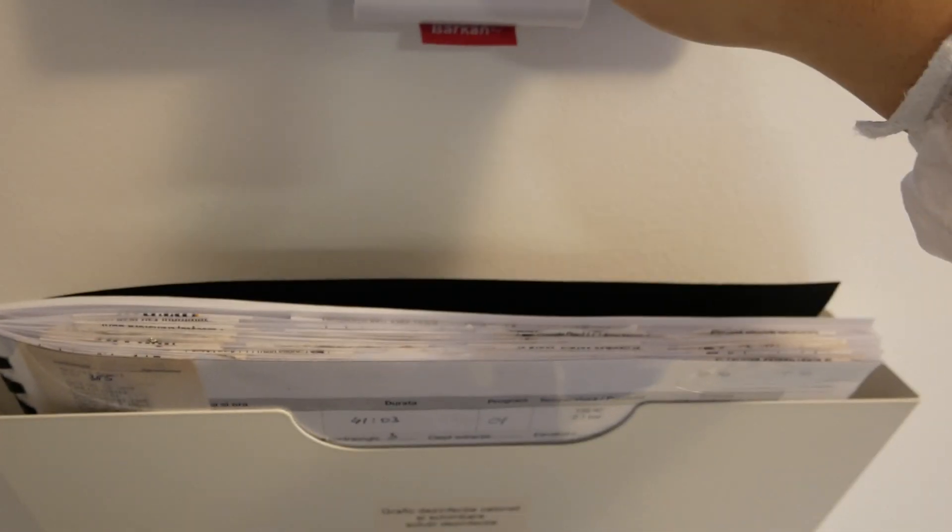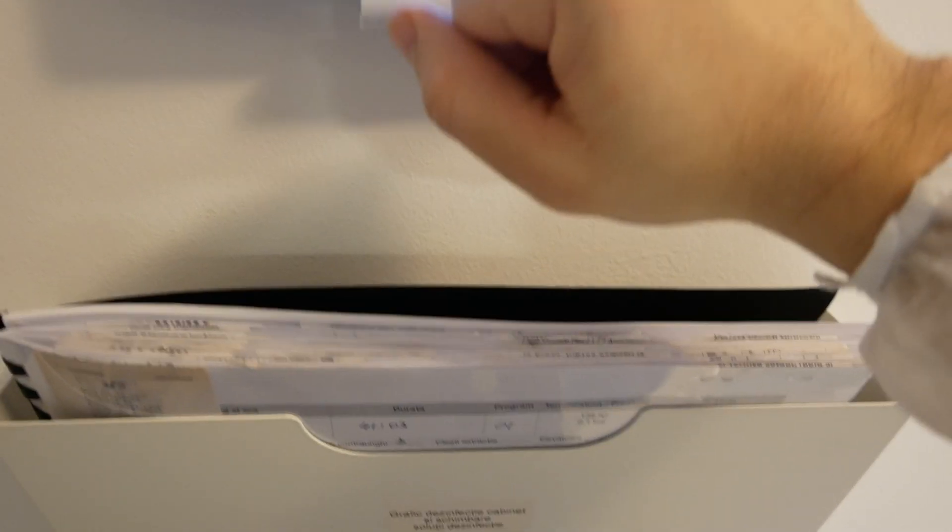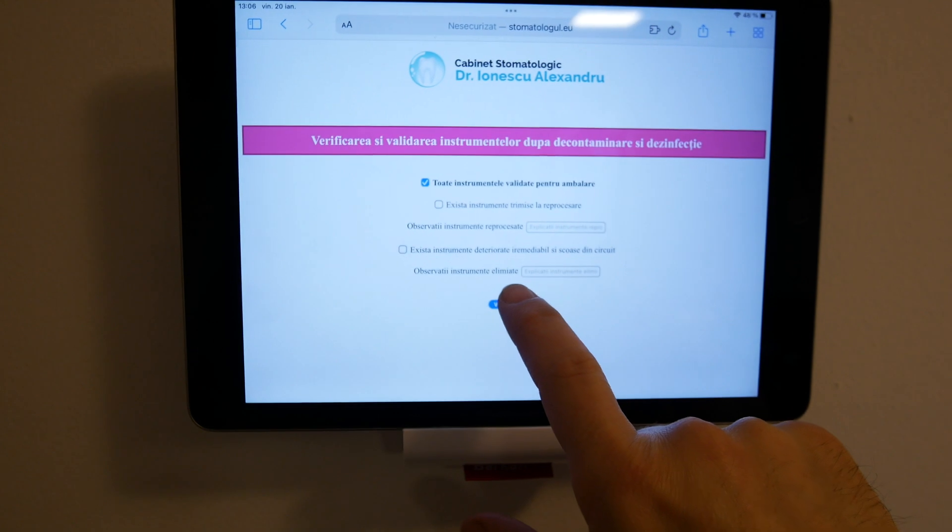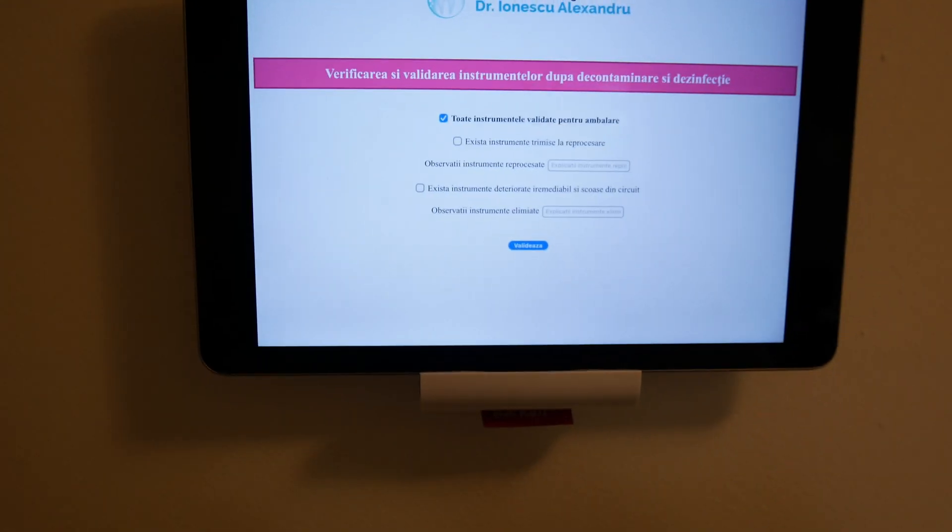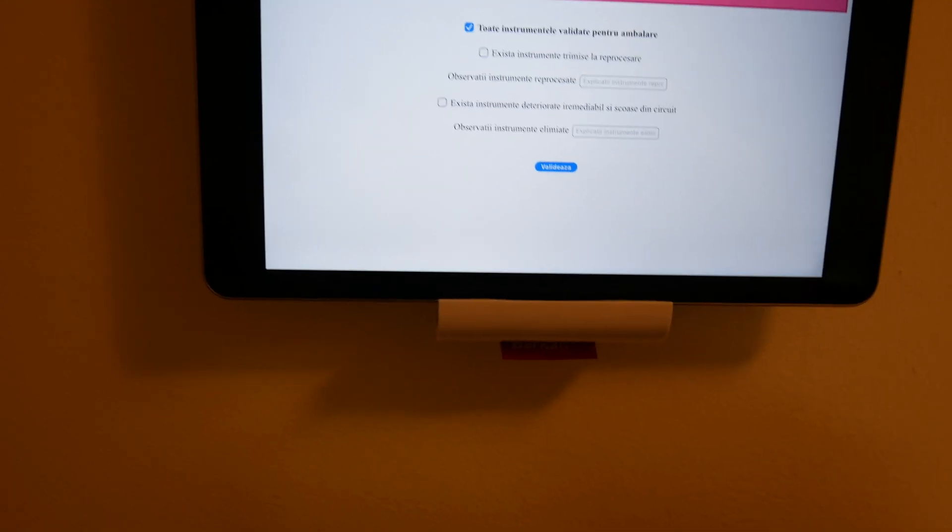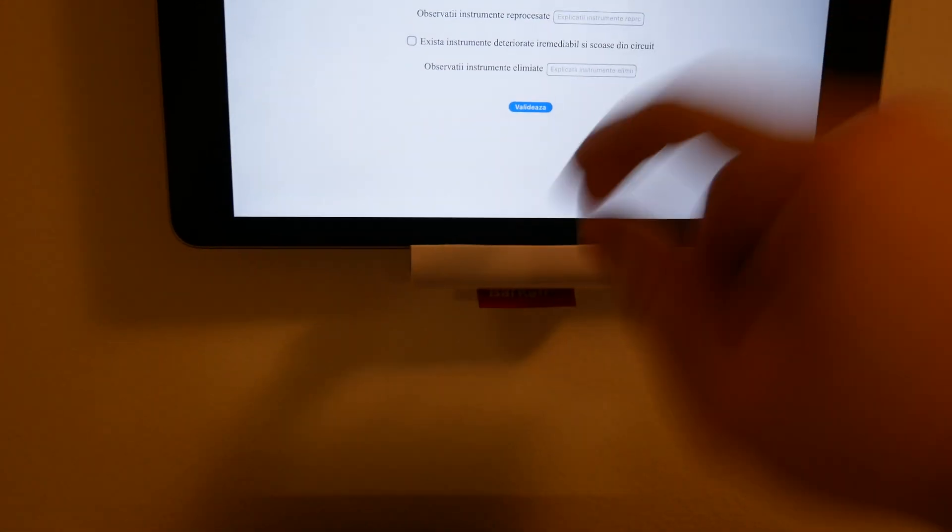I'm also documenting this, checking before packaging. All the instruments have been validated for packaging. If some of the instruments have not been validated, I explain what needs to be reprocessed and why.